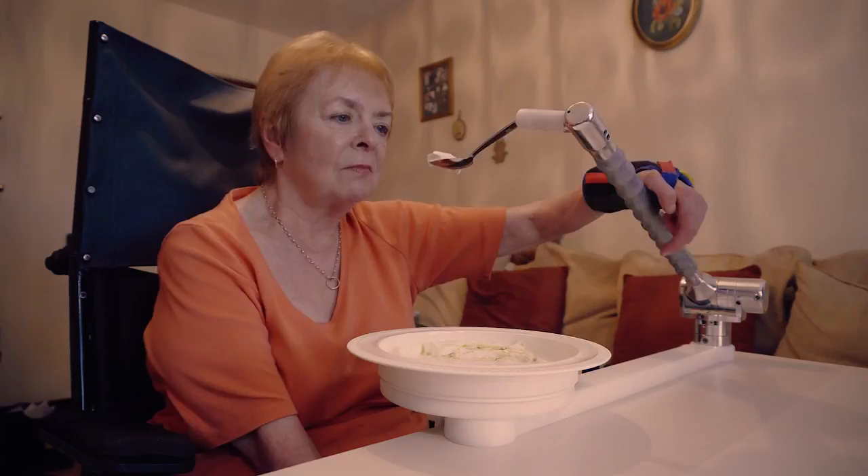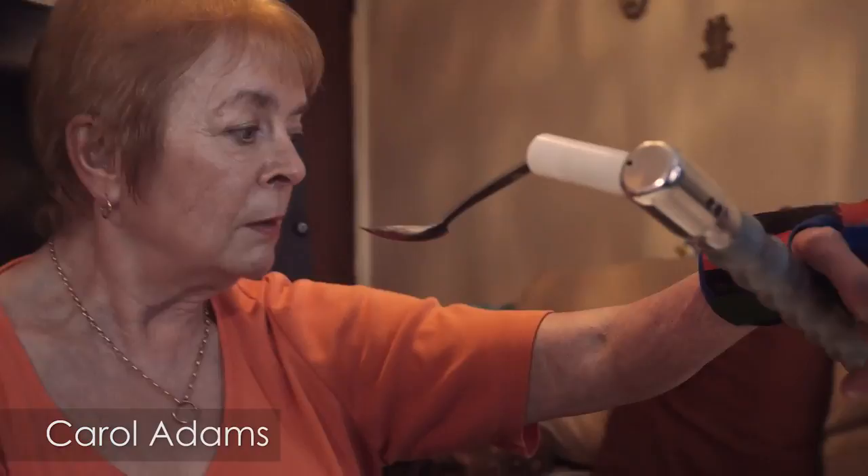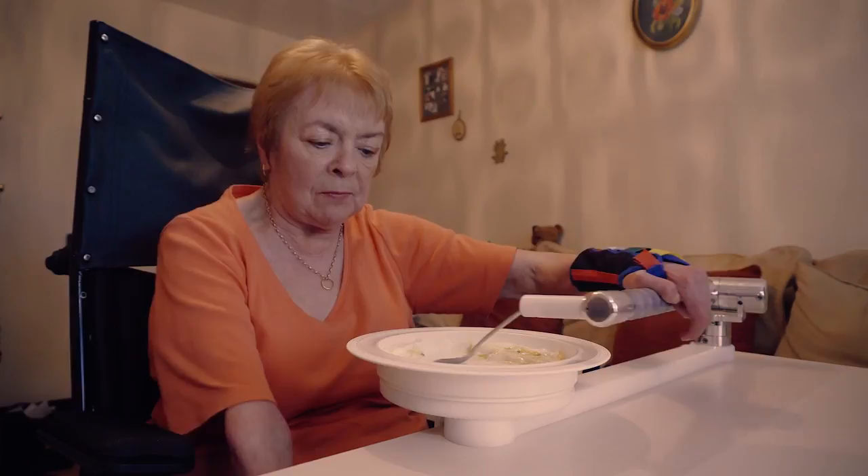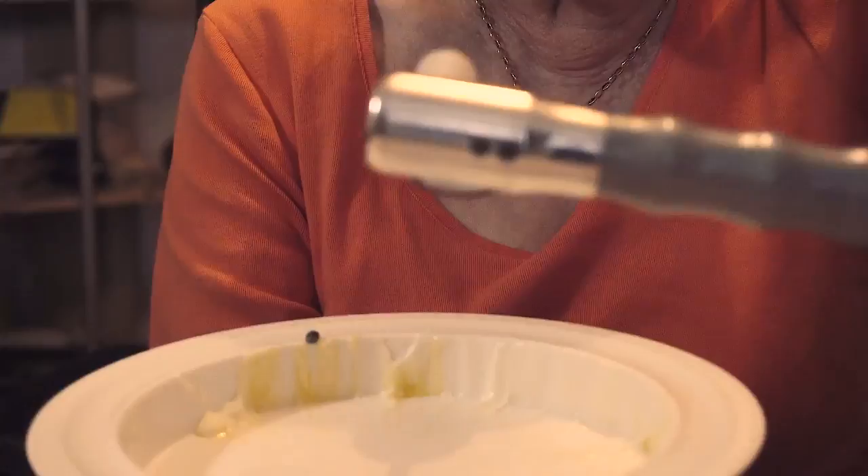I have all my evening meals on this. This has helped because my arms are quite weak and sore, so this has just saved a lot of the pain that I go through. It's made it a lot easier for me to eat my meals. And it's just easier to get the food to my mouth rather than holding two hands together to get the spoon to my mouth.